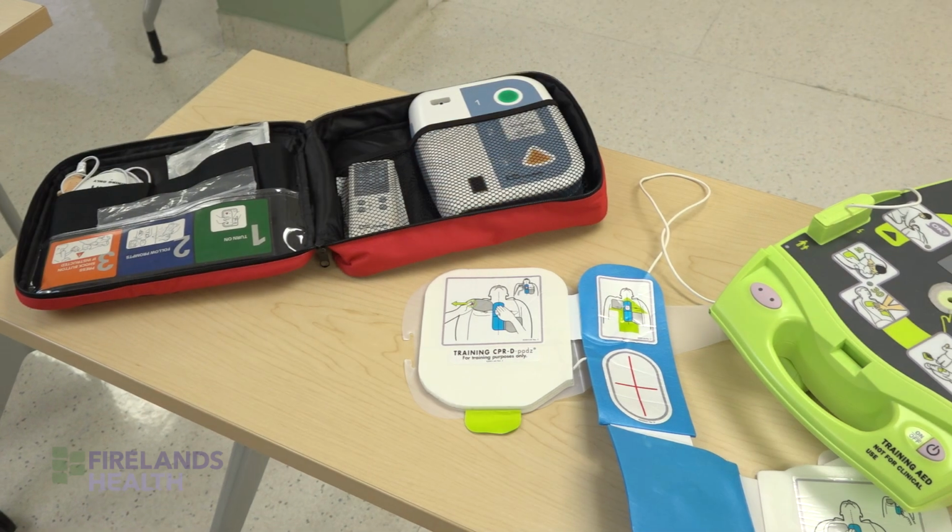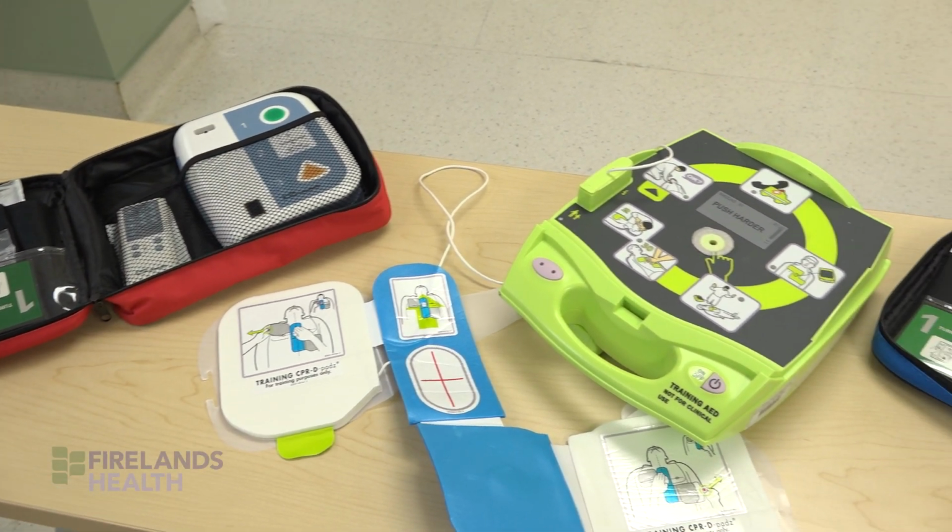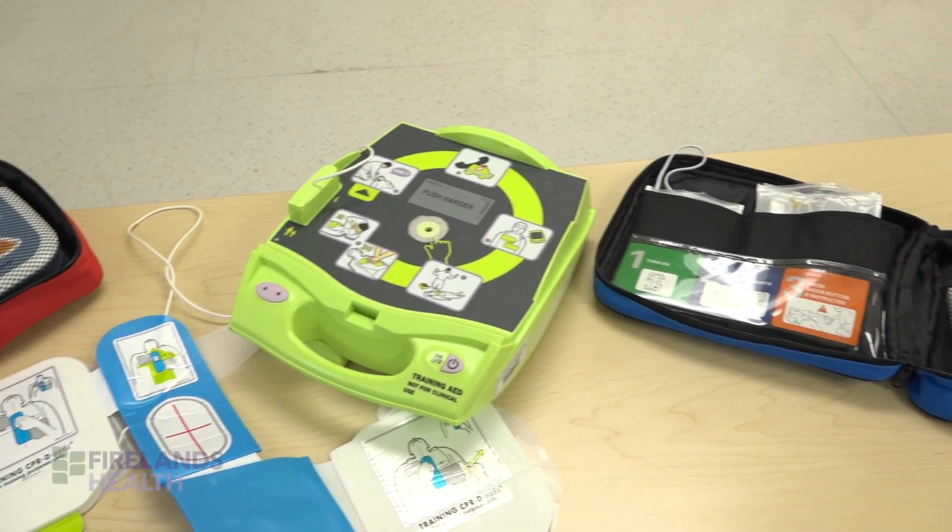Public access to an AED and community training is important to making sure that AEDs are used properly. When used properly, AEDs can help increase the chance of survival by 67%, and adding CPR along with it can make it an even higher chance of a person being able to survive. There are many different AEDs out there, but all of them can be used in a similar fashion.